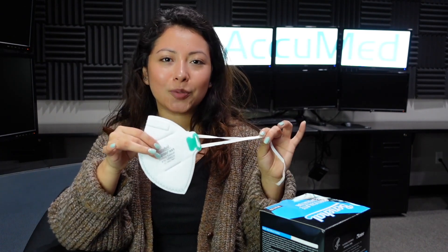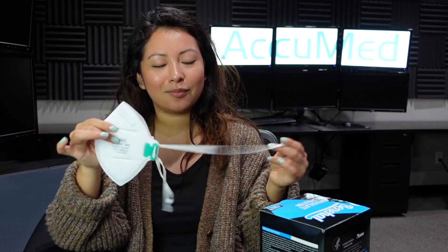We're back and they did pass the filtration test. When it comes to comfort, I'd probably give it an 8 out of 10 — it is a really comfortable mask, it just never really sat well on my face. When it came to fit, it fit a little big when I first put it on, but I was able to adjust it. The strap just kind of came off, which leads to the quality and construction. I feel like the quality is really nice, but the attachment issue and the headband coming off threw me off — I'd probably give that a 7 out of 10.